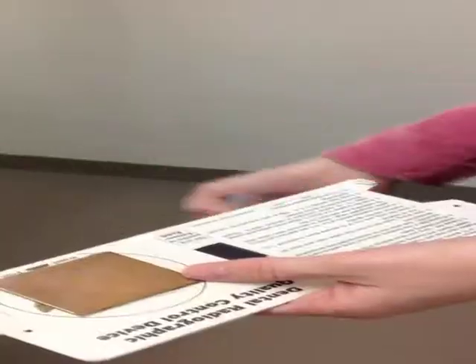The next thing as radiology assistant that you need to do is you need to come up and get 5 films from the instructor at the instructor desk. These films are to be single packet films that are to be used to test the exposure of the x-ray machine. So we're going to show you how to do that now.